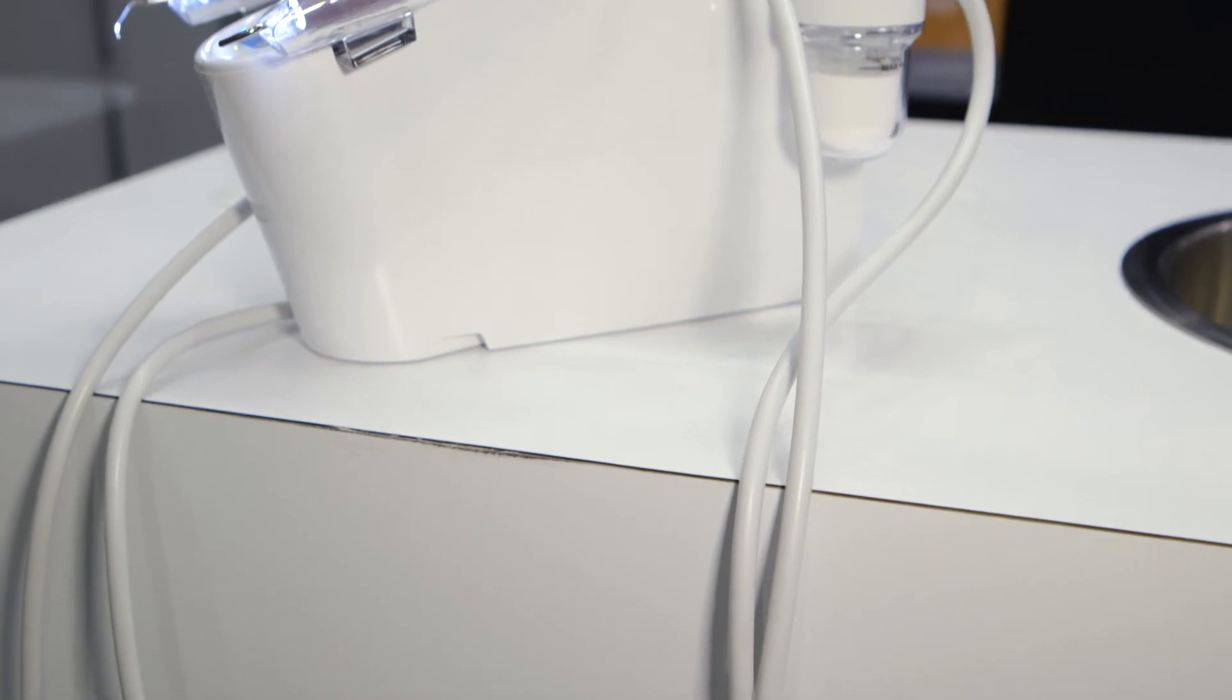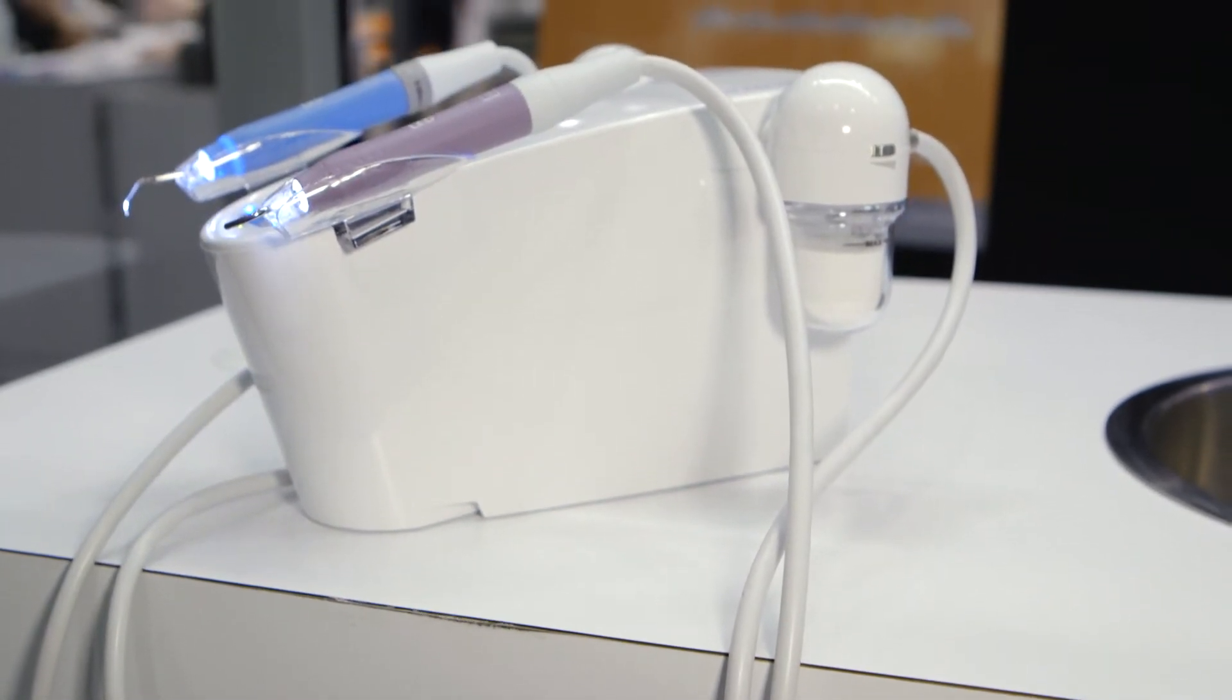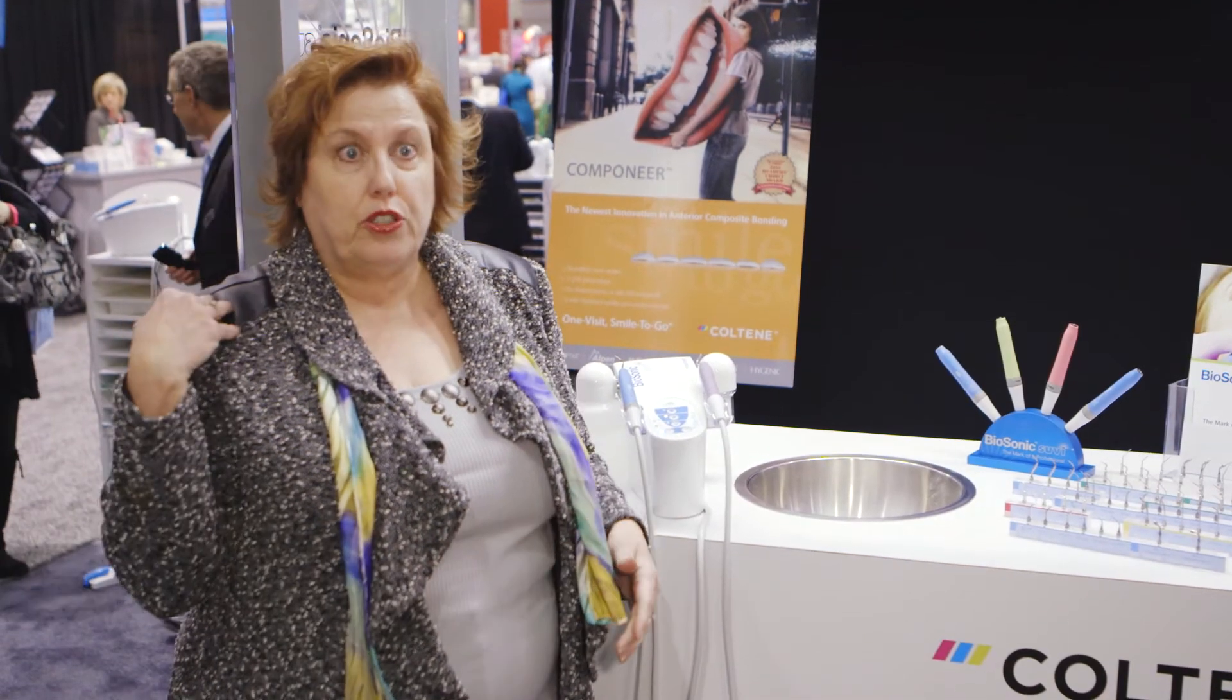I like the weight of the cords because a lot of times the cord gives a lot of pull and contributes to carpal tunnel issues and shoulder issues.